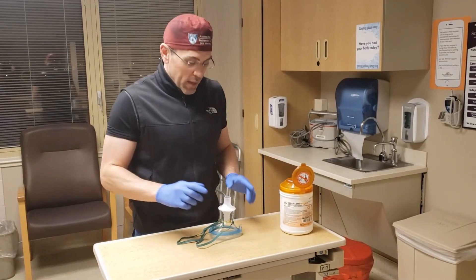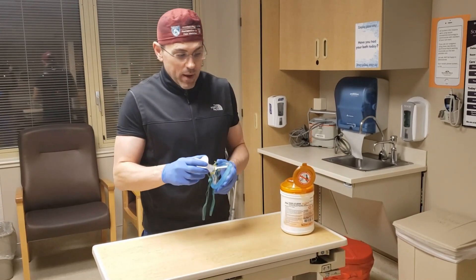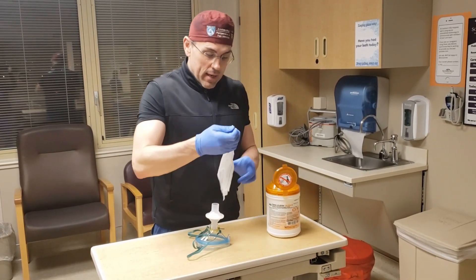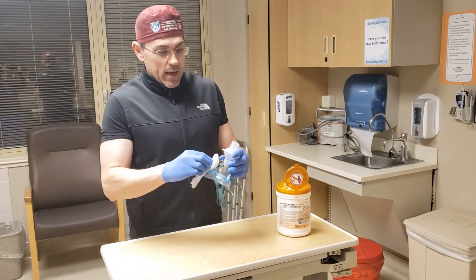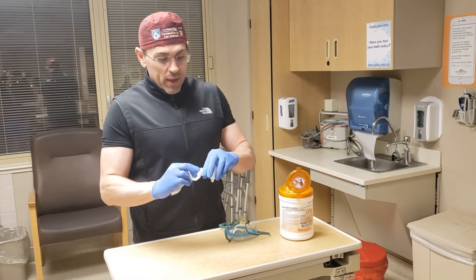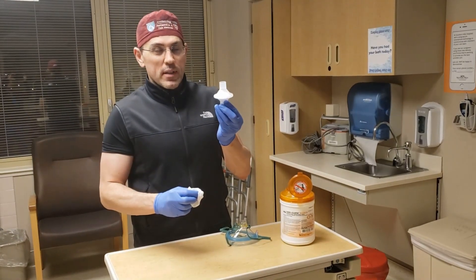I hope this possibly becomes helpful at your institution. One additional nice aspect of this particular device is that it's not cloth like an N95 mask, so we can clean it. We can clean the mask itself, inside and outside, and we can also clean the filter. However, if we clean the filter, one thing to be cognizant of is not to get the filter itself moist or damp.